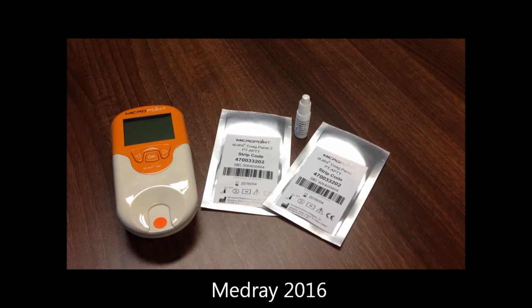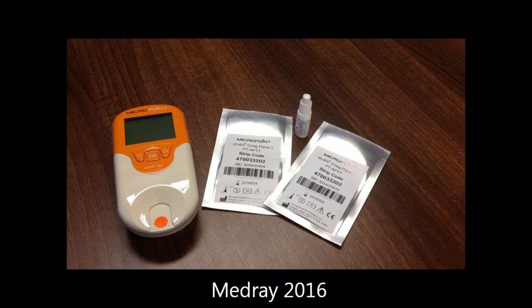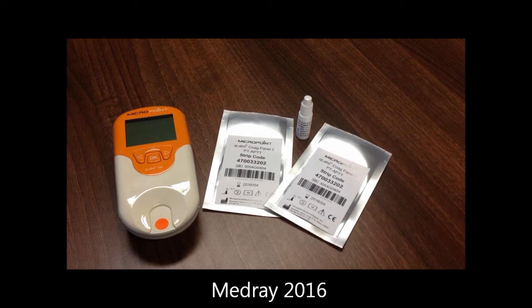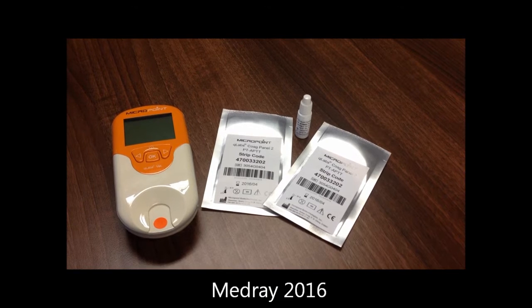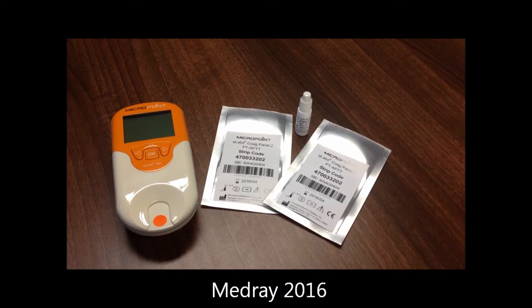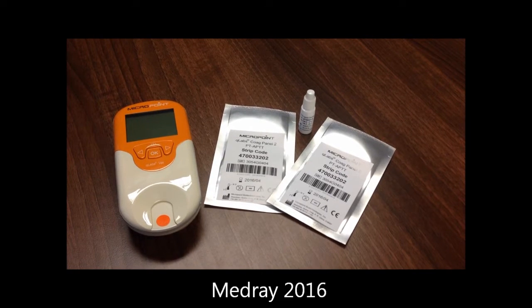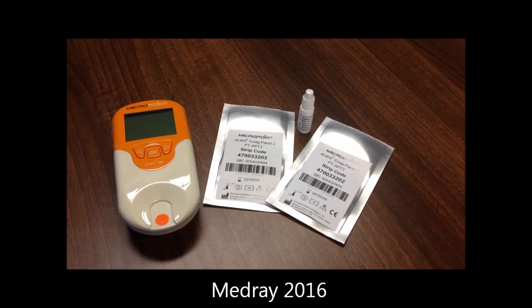The Insight Q-Labs Veterinary Coagulation Analyzer allows veterinary practices to carry out point-of-care coagulation testing in practice, offering excellent correlation to central laboratory results. The low-cost test strips, which combine PT and APTT on one test strip, do not require refrigeration. PT-only strips are also available.